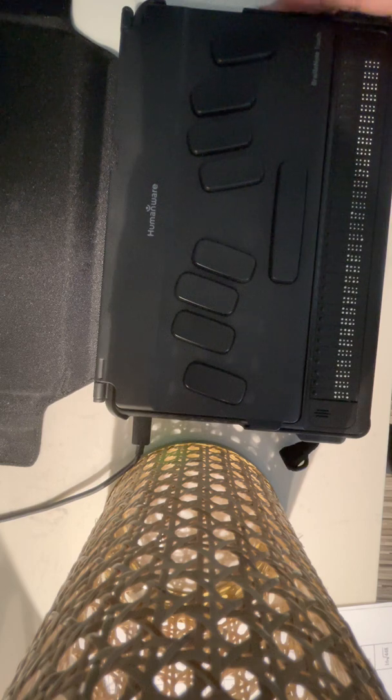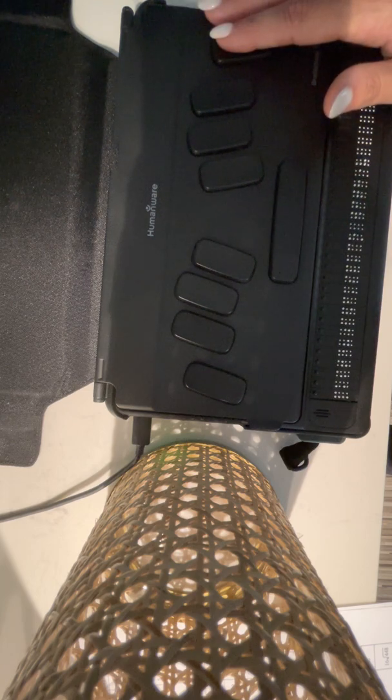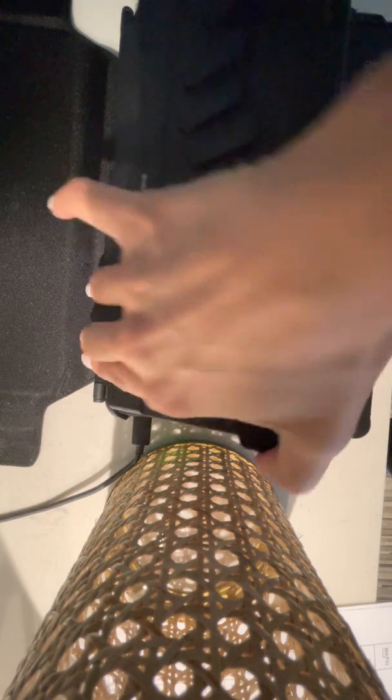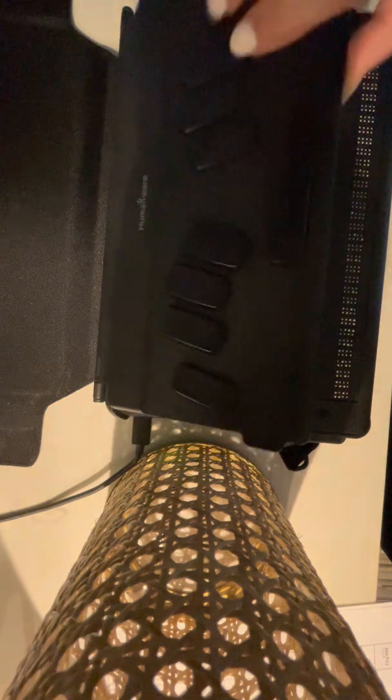I'm going to go down to file, editing functions. Editing functions. Spell check. Then I'm going to go down to paste. Find previous. Find next. Replace. Insert page break. Backspace, insert math. Copy. Cut. Backspace. I'm going to go ahead and press V and paste it. Edit box. Pasting in progress. Please wait. Pasted. Edit box. End of document. Okay, so it put my math equation in there for me.